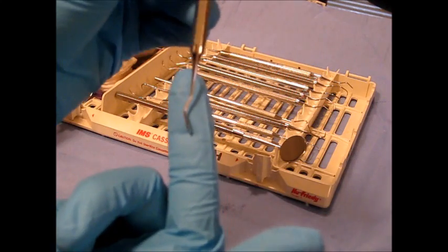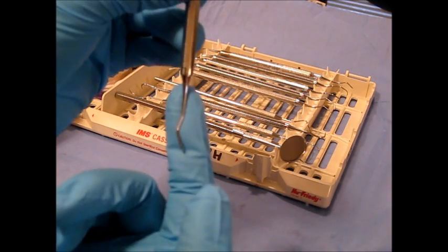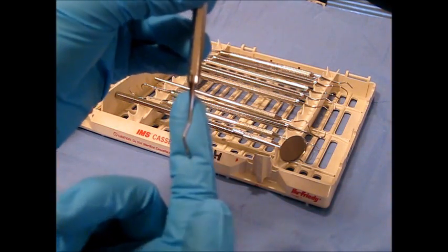It has a complex shank and it's rigid, meaning that it's used to remove moderate to heavy deposits.